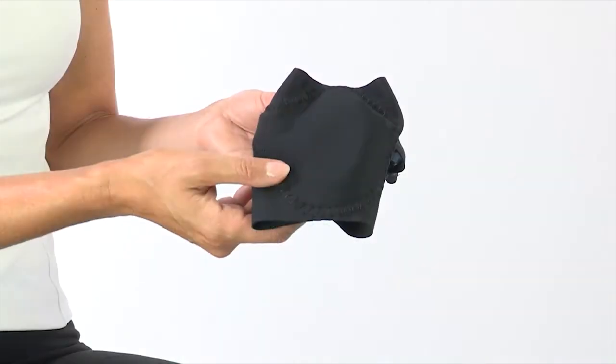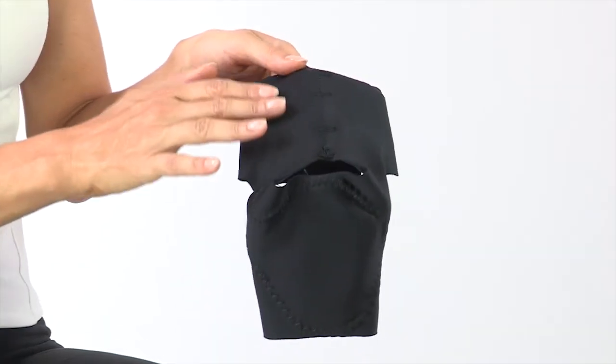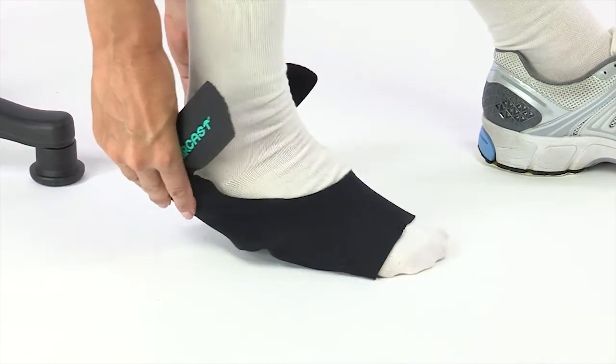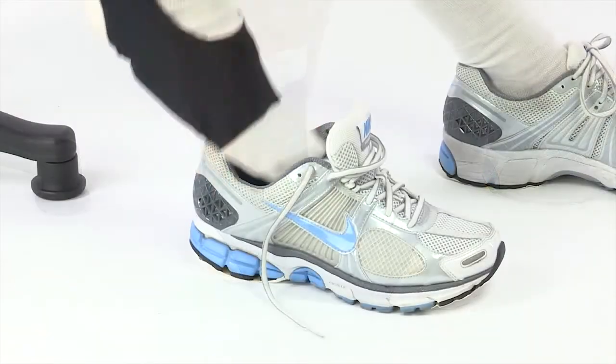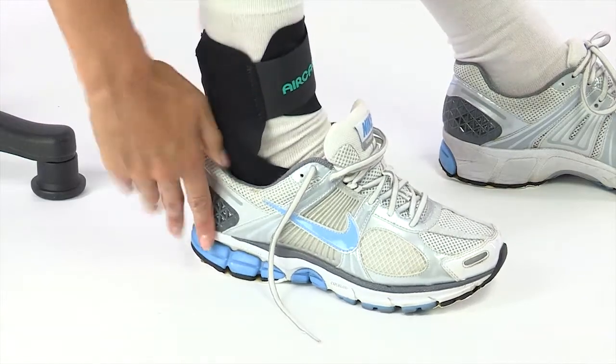The Air Heel is made of breathable lightweight fabric and is simple to apply. It slips on just like a sock and easily adjusts with the one strap. With its streamlined design, the Air Heel fits comfortably in most shoes.